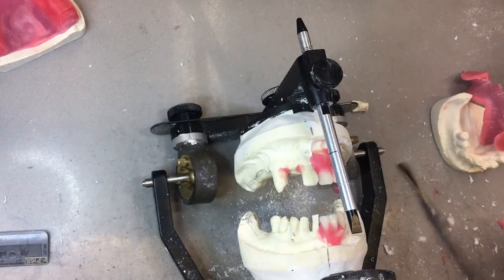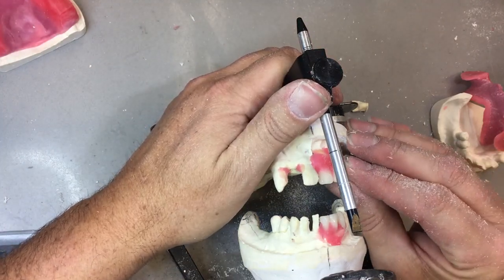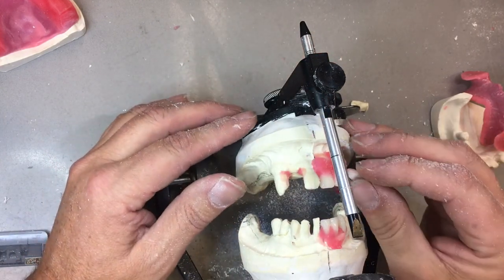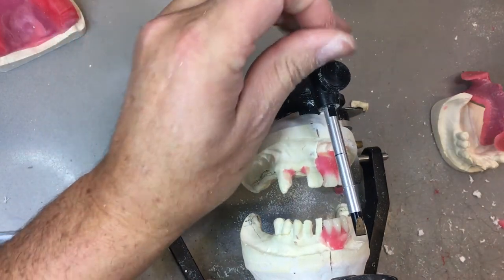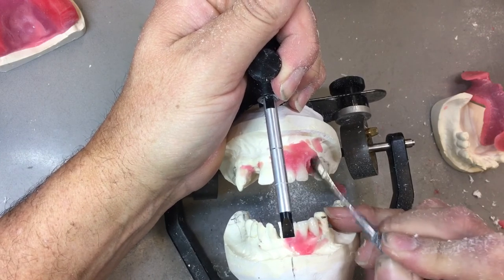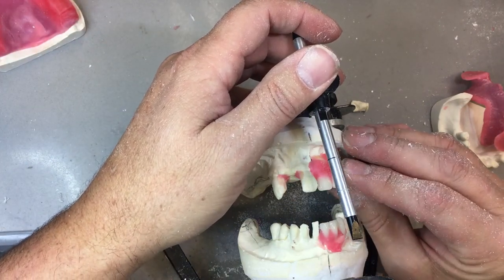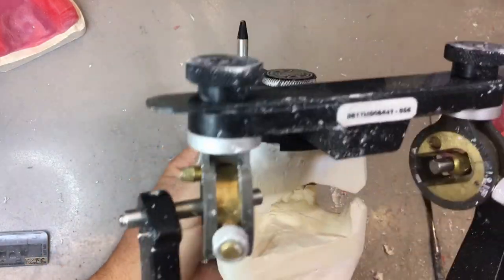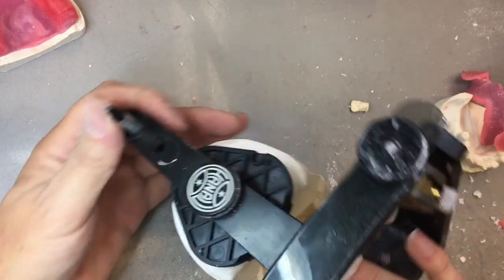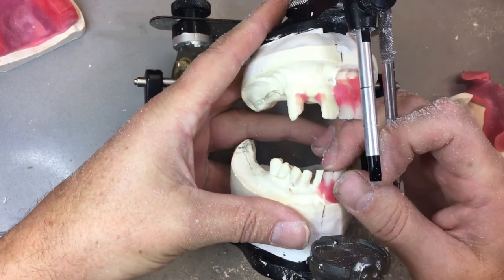I'm going to go back to my 2-3 and move the neck in a little bit. One thing you should be seeing here: don't be afraid to put the tooth in and take it out again. Don't just set it in and say you're done — take it back off, you can put it back on, it doesn't take long. Sometimes it's painful when you've got all 28 teeth set up and then want to move the midline — that's painful. Now's the time to assess and reassess. I should be using this side from behind. In my office I'll have a mirror so I see the reflection because I'm right-eye dominant. Lots of different techniques you can do to check your perception.